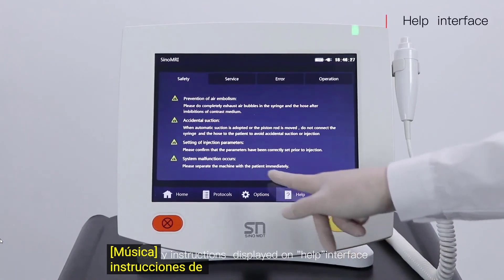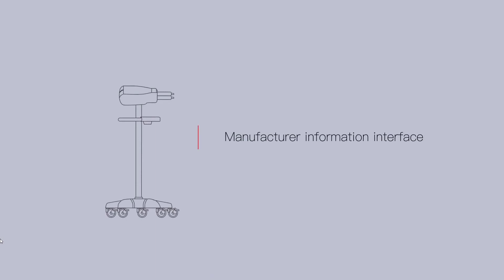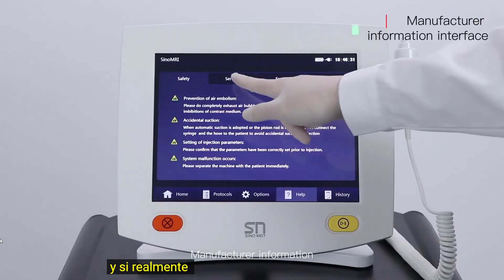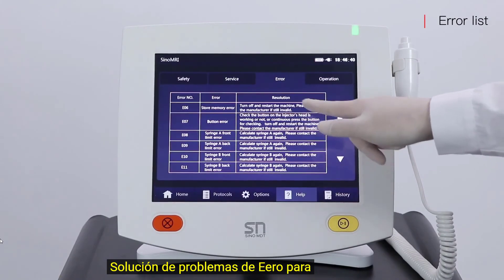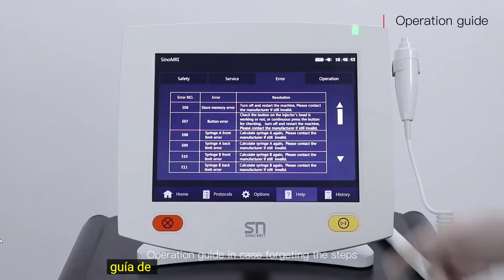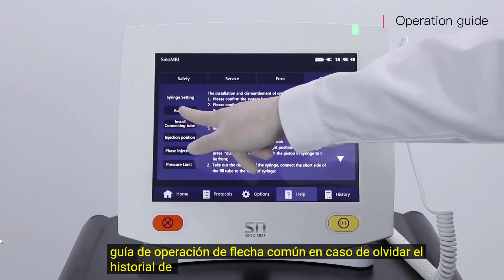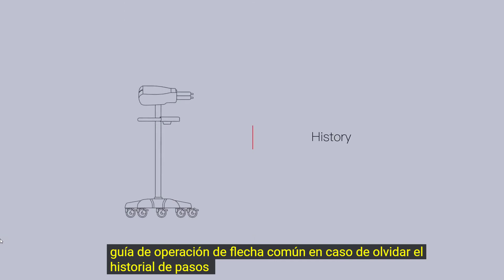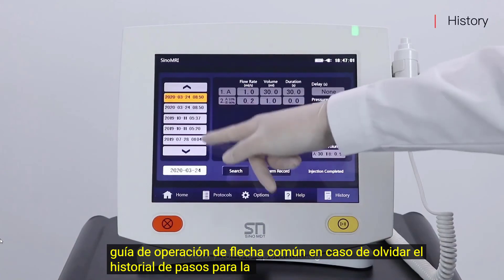Safety instructions are displayed on the help interface. Manufacturing information is also available. There is an error troubleshooting section for common errors, an operation guide in case you forget the steps, and a history log for operation records.